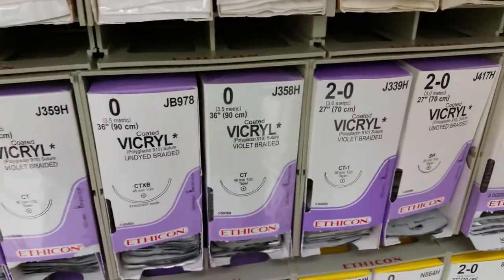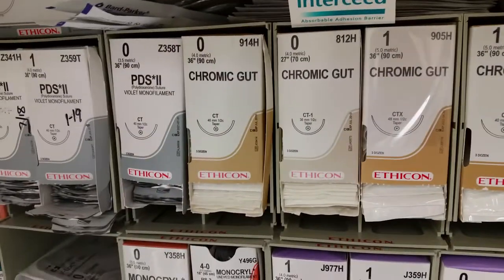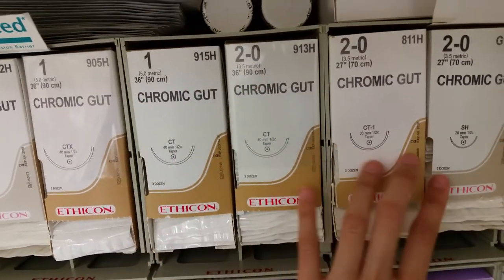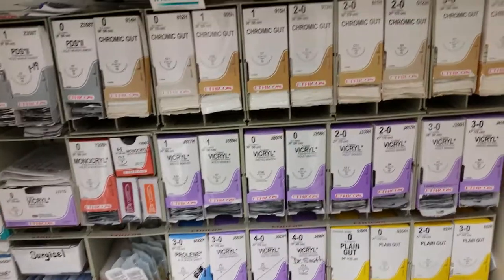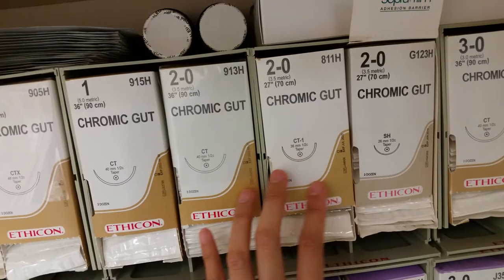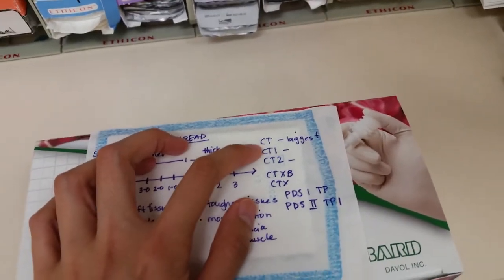Now this letter on the box — CT, CTX, CTXB — that's confusing as a student and as a beginner. The best way to understand it is to memorize categories and group them. There's CT, CT1, and there's actually a CT2 and CT3, though we don't have those here. You just kind of group those types of needles and you'll see the difference.